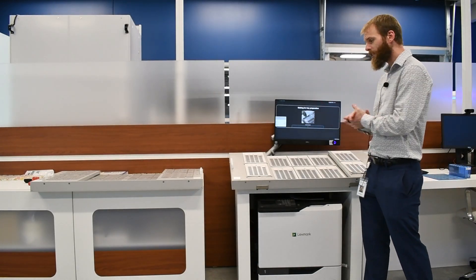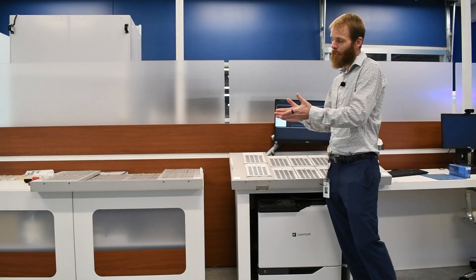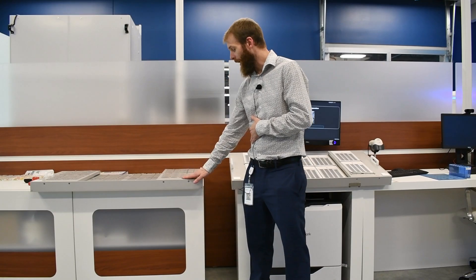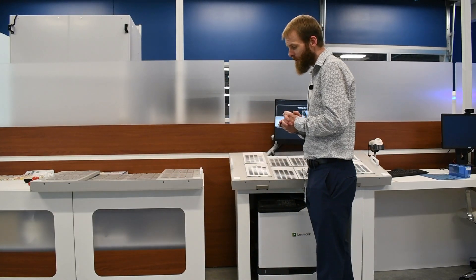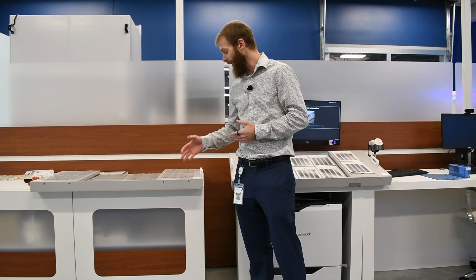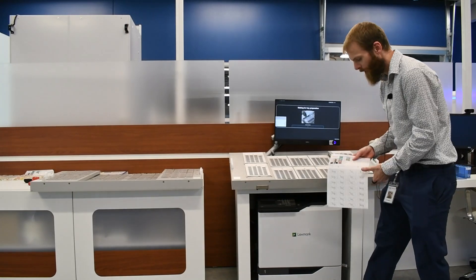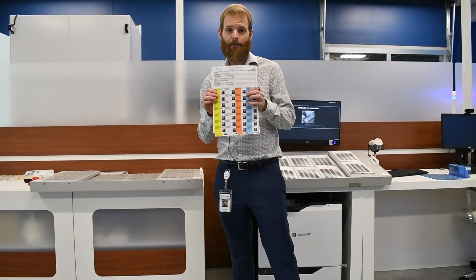Once the tray is completely filled, the tray will be physically moved down into the sealing and verification area in your workflow. When the tray gets moved down to this section, your staff will print out the actual labels for the cards. We do provide a Lexmark printer, and that is where these labels will print out of.